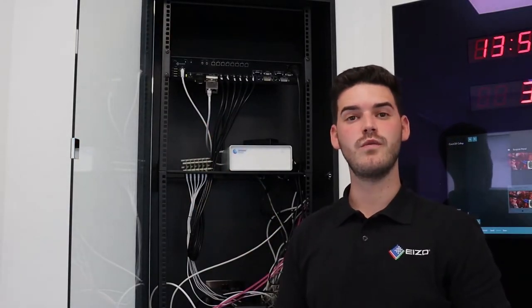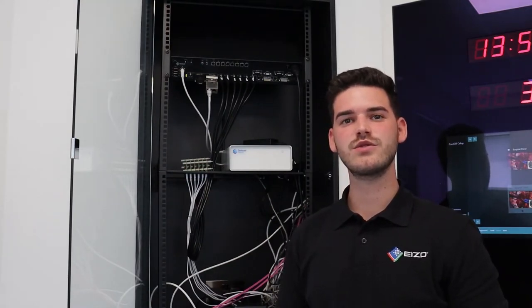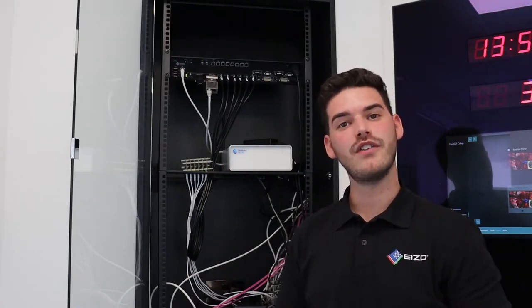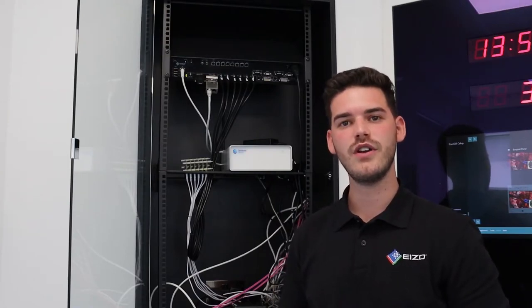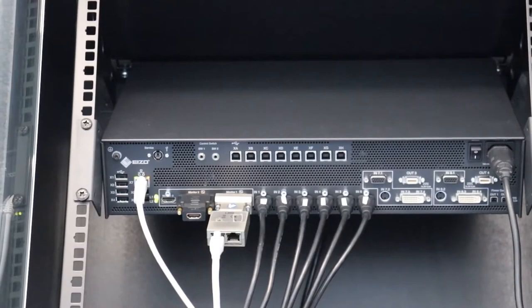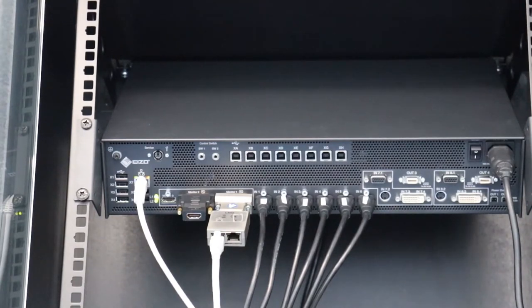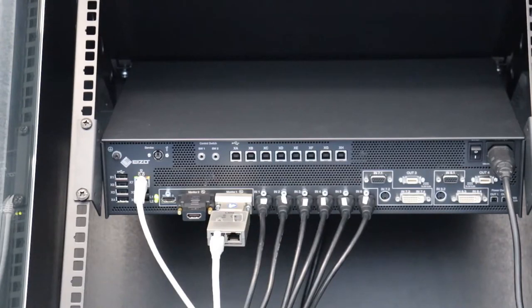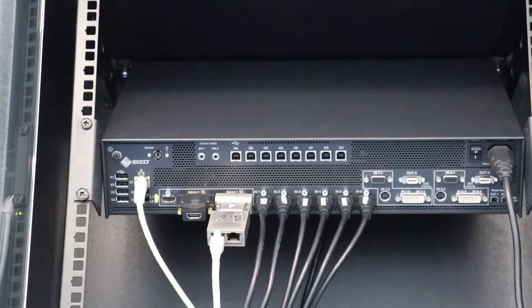Here we have the Large Monitor Manager, or LMM. The LMM bundles up different analogue or digital signal sources and enables you to view and control them from one location. A perfect use case for the LMM is a control desk or cockpit-style solution within the operating room. The model we have here is the LMM804. It's able to collect the separate sources and display them on a large format or multiple monitors with a resolution of up to 1920x1200, including full HD.